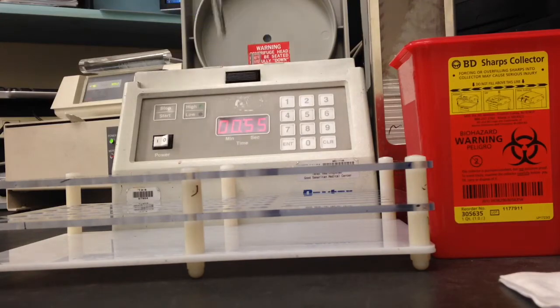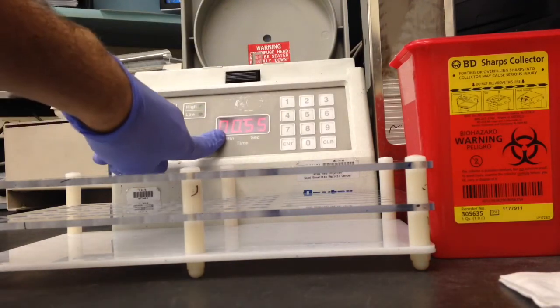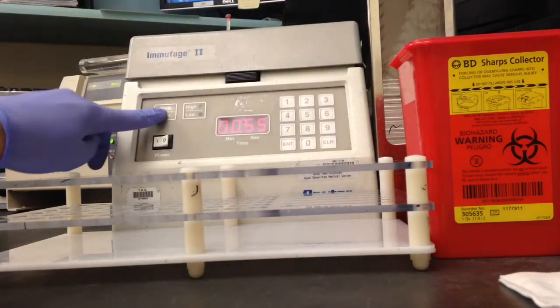Then go ahead and load into your centrifuge. Now depending on your policy you may do it longer, but I typically do 55 seconds for my spin.